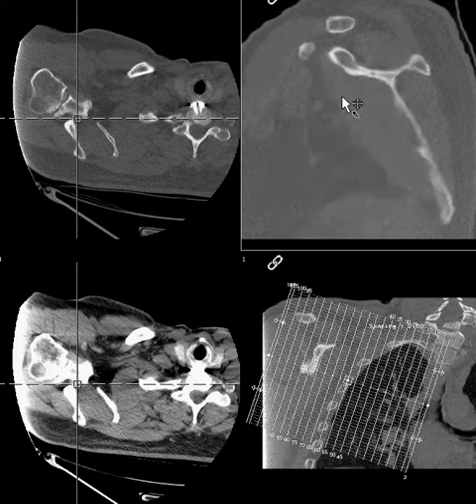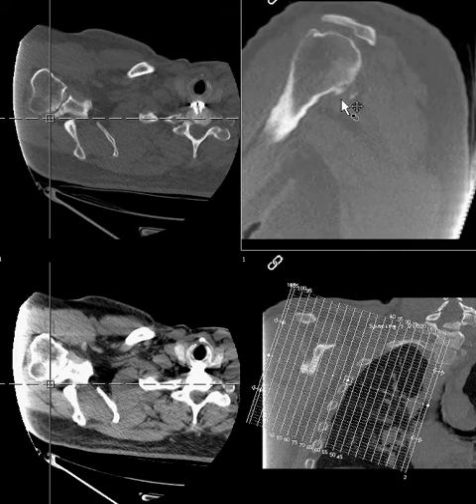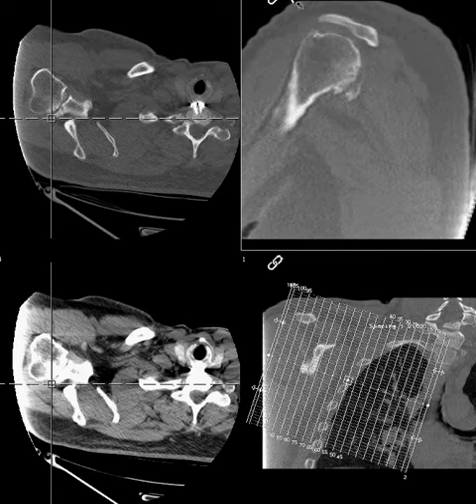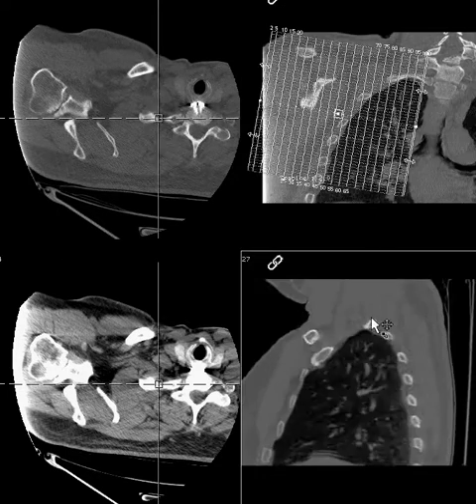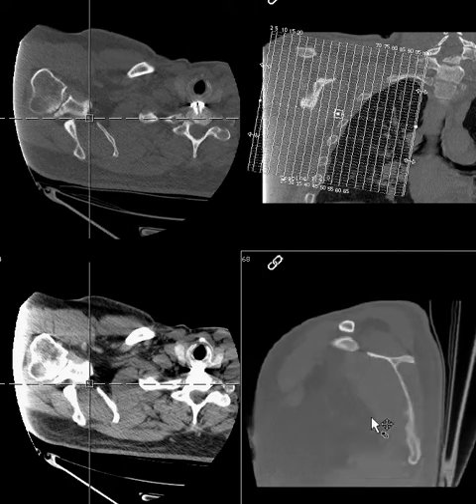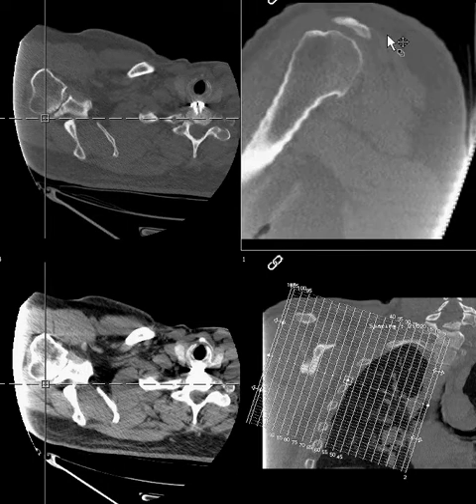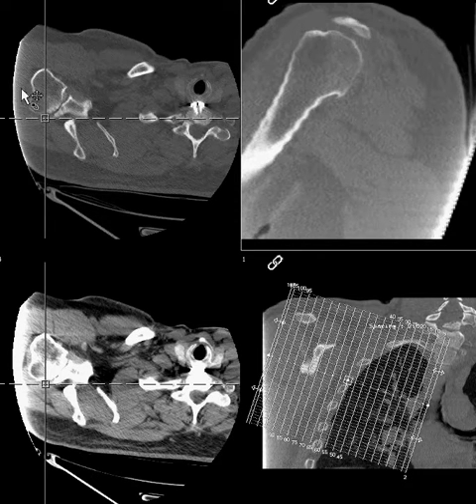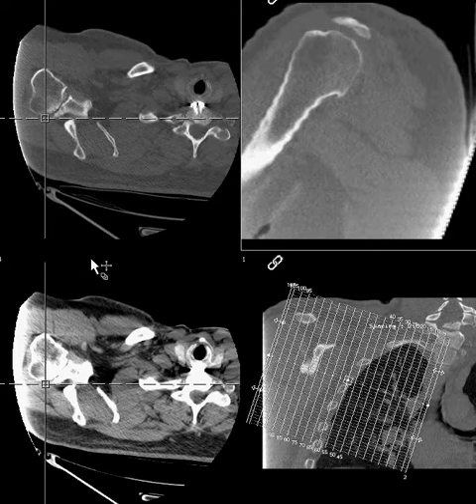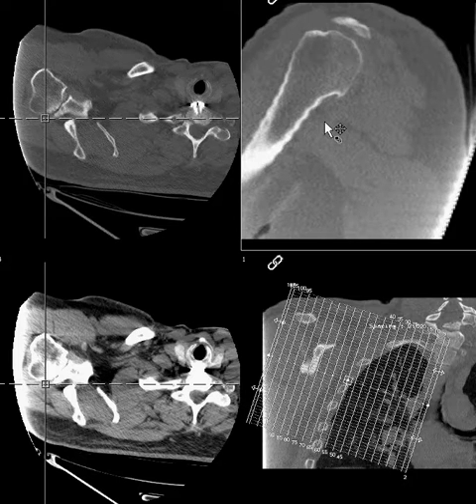But also look at this. This reformatted image has this very stair-steppy kind of appearance all over the place, while this one does not. I think that this one was reformatted off of some thicker sections. In this case, we do have thin section 0.625mm slice thickness available, but there are also some thicker sections that this was probably imaged off of. So two things to avoid.